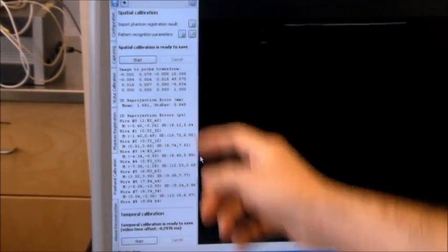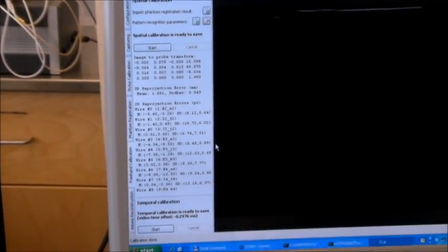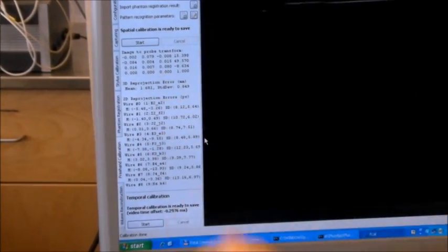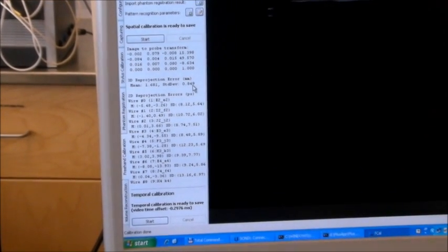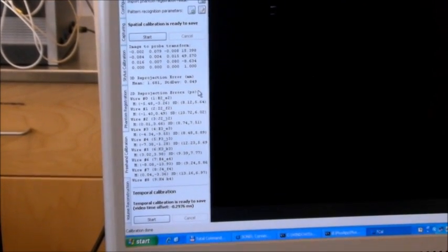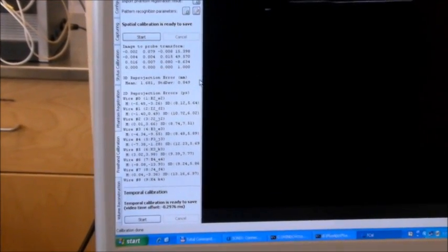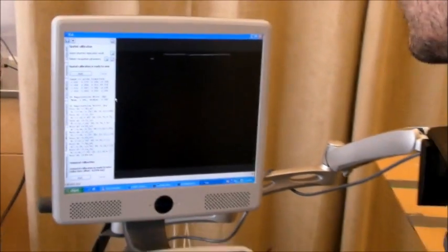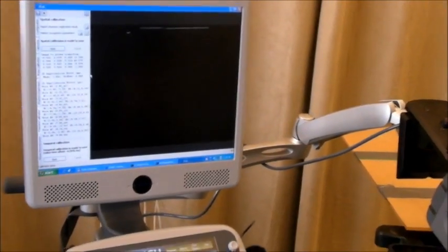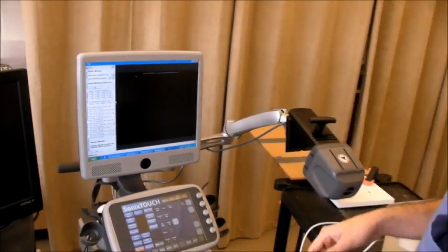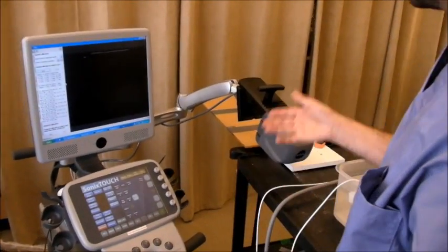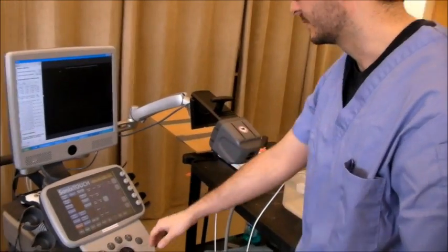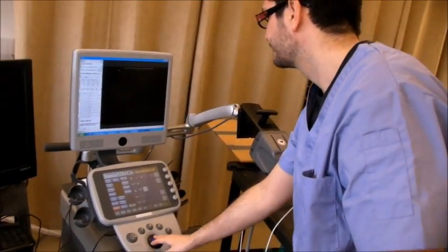Here are the error statistics. You can see the error is 1.6 millimeters, which is not too bad. This error might be due to temporal calibration, or the inaccuracy of the electromagnetic tracking.